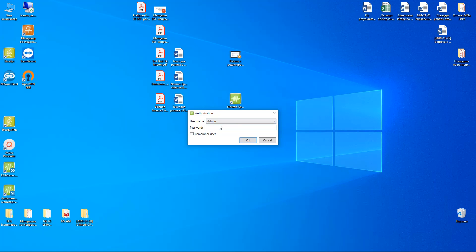By default, the username is admin and there is no password for this user. But in the settings of the software, you can create different kinds of users and prepare different passwords for them.